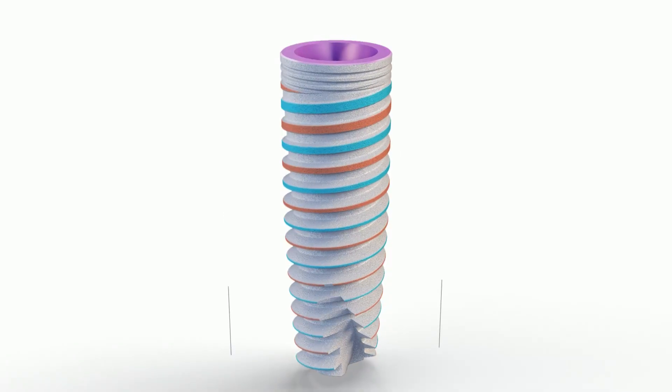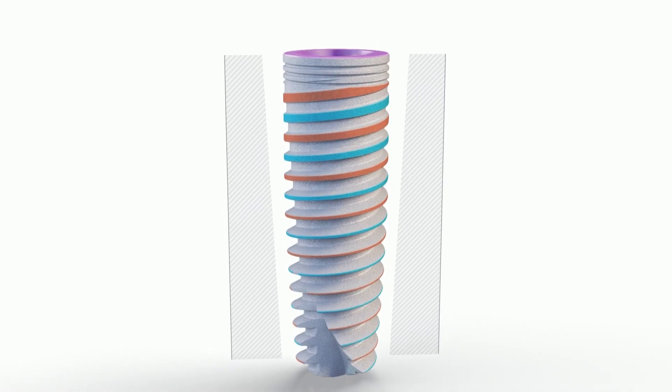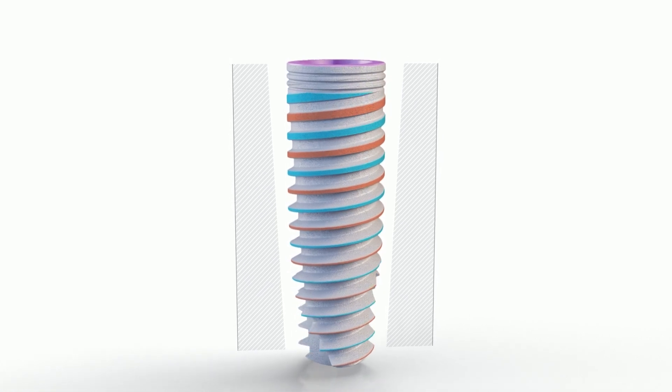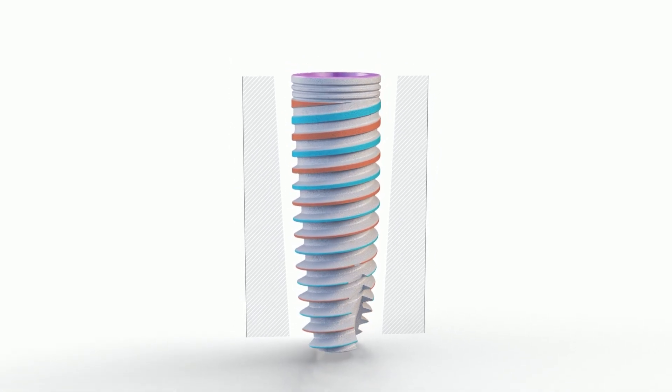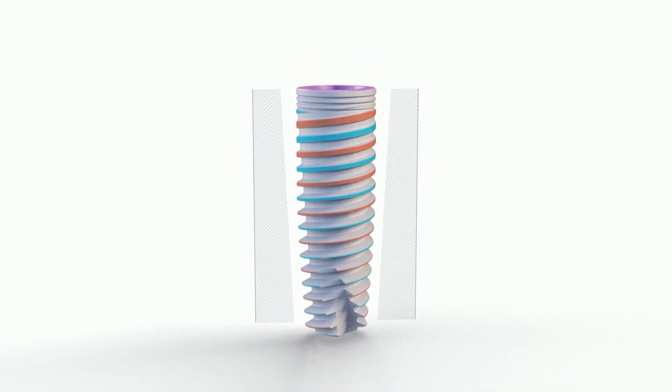With its conical root-shaped geometry, C1 is engineered for high primary stability and offers the ultimate choice for a wide range of clinical cases and loading protocols.